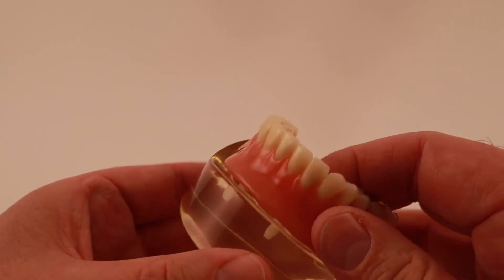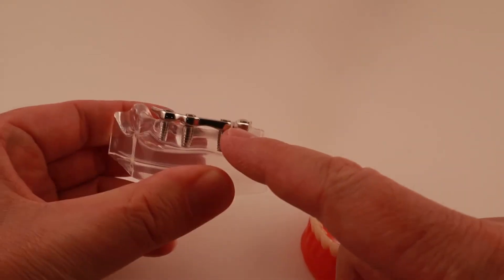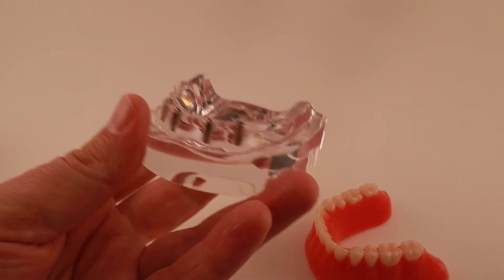Category 2, at-home cleaning. Since both types of overdentures are removable, you can clean them with a toothbrush and some dish soap, then soak them overnight in denture cleaner. The difference is how you clean the implant parts in your mouth. The implant retained overdenture only has little gold posts which stick up through your gums — those are pretty easy to keep clean with a toothbrush. The implant supported overdenture has a metal bar attached to your implants, and you have to clean it with a toothbrush and use either super floss, a floss threader, or an interproximal brush to clean underneath the bar.